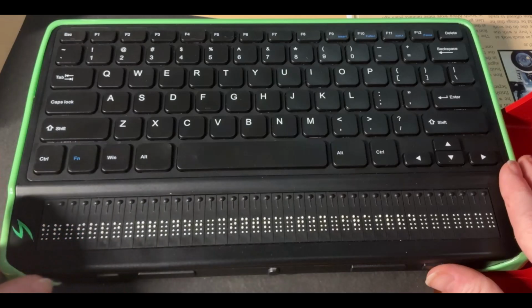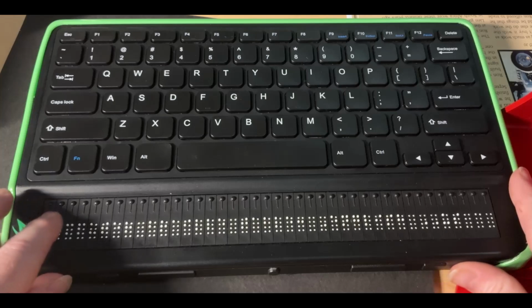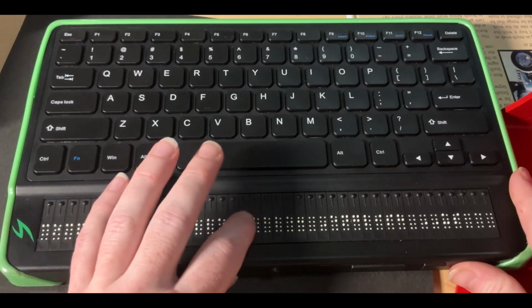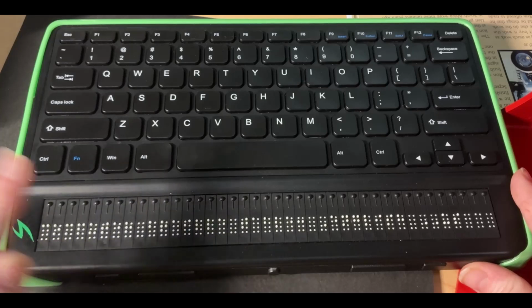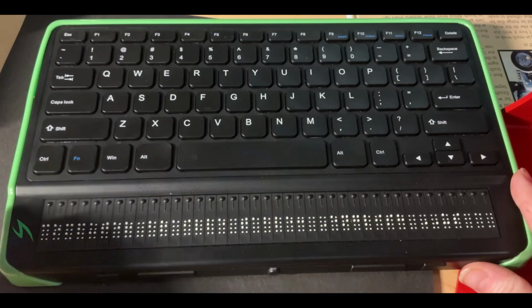To go to the next setting in this area, I'm going to press the next thumb key. And this setting says computer Braille table. So when you change the computer Braille table or any of the other two Braille tables, there are three obviously. So there's the computer Braille table, the uncontracted Braille table, and the contracted Braille table. You set all of them here.